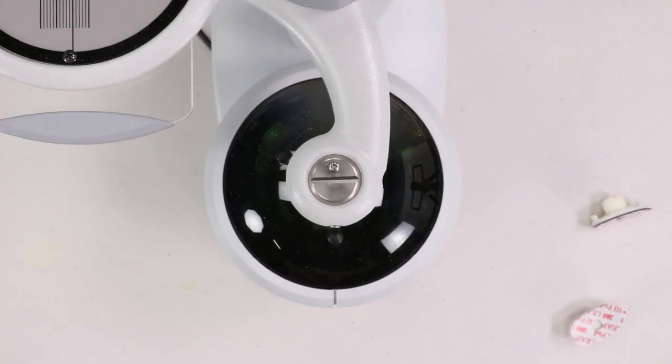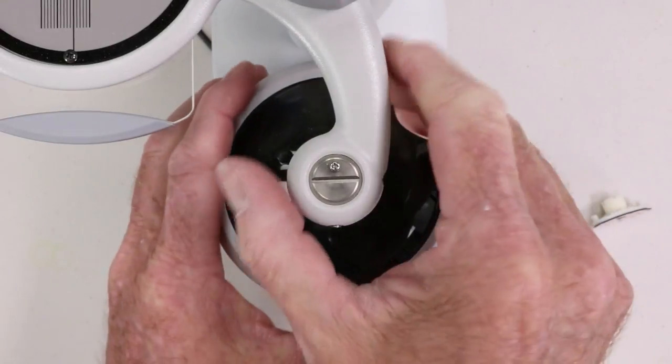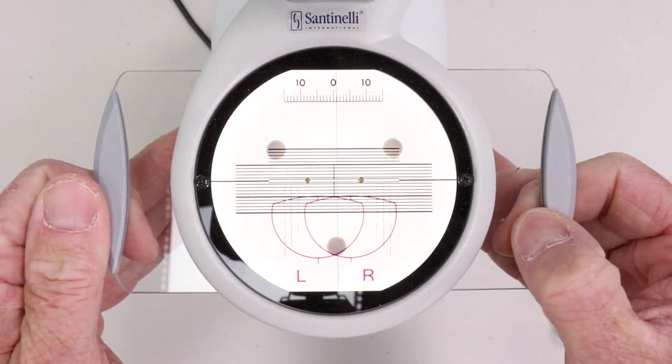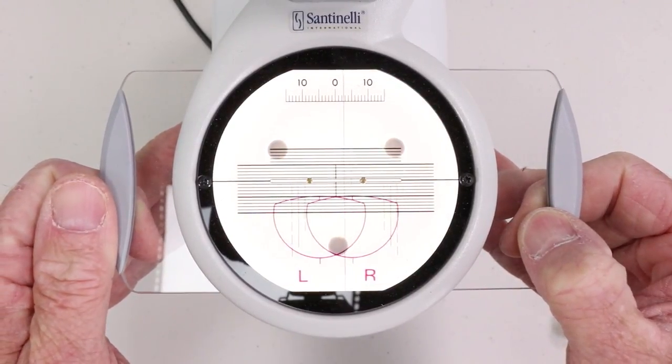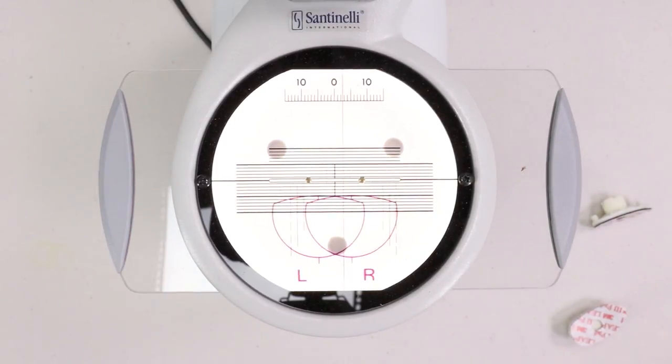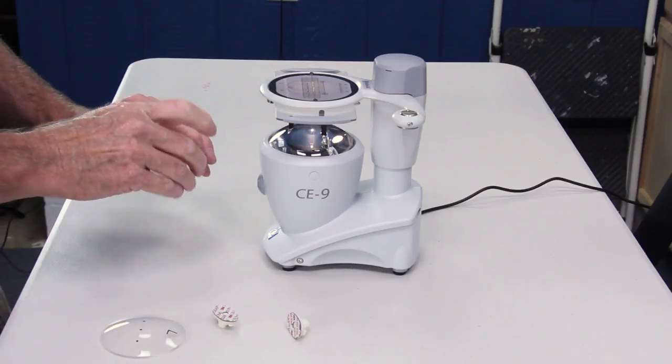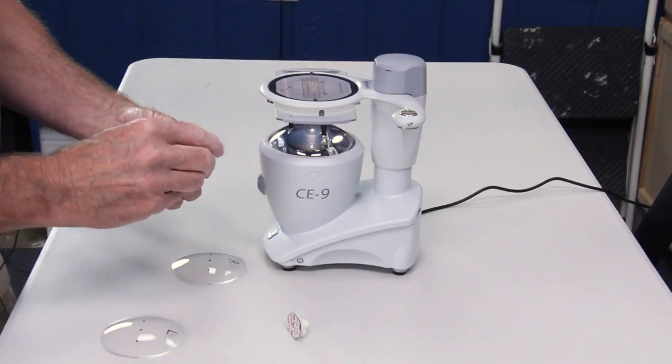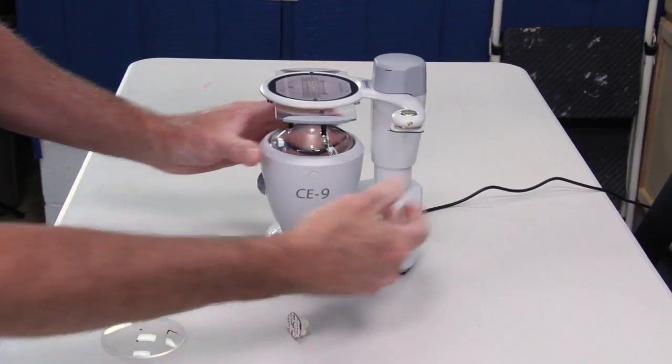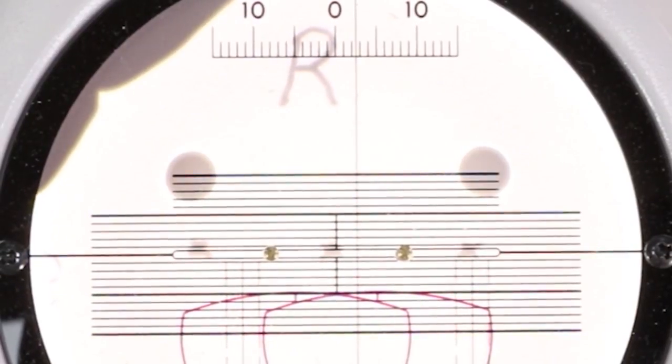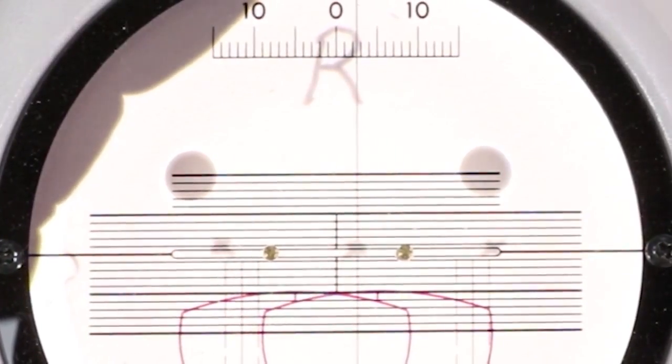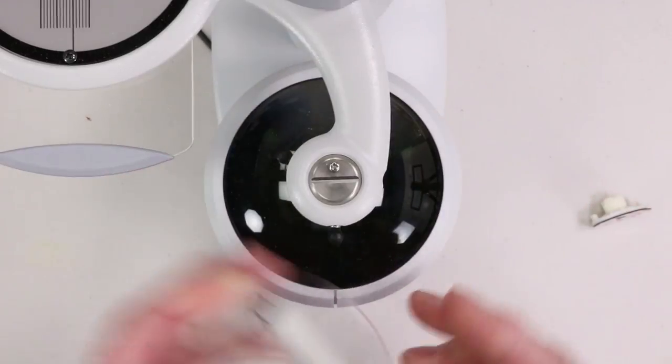Let's see what that would look like in the blocker. For example three, I have just a little tiny 2.5 millimeters of movement. That would be my zero, that would be one, that would be two, that would be 2.5. Again, right moves right for in decentration, left moves left. I just will go ahead and load that block. Nice. That would be on center or zero. I'm moving that OC over two and a half millimeters. Sticking my block on.